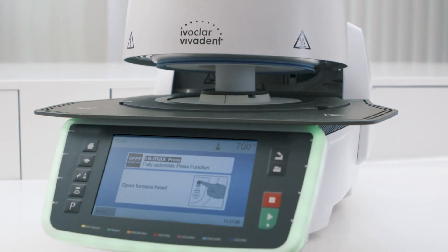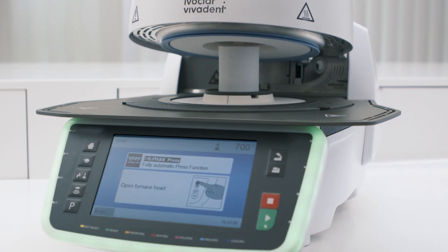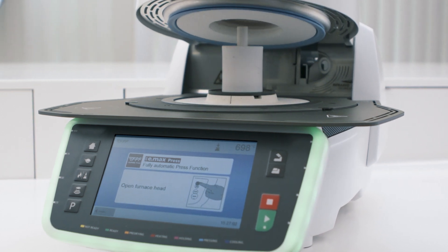At the end of the press program, the investment ring can be removed and divested in the usual manner.